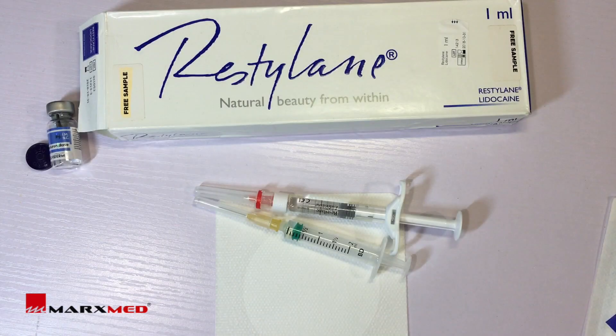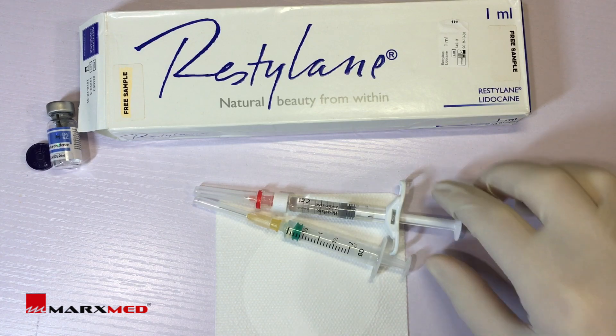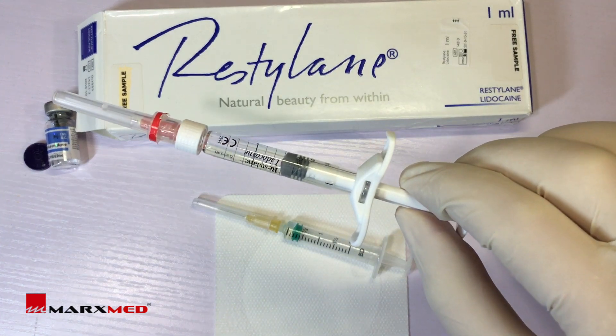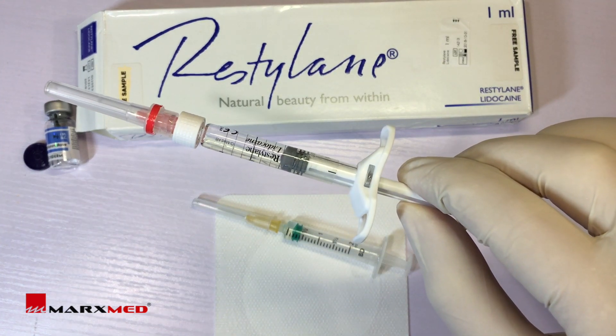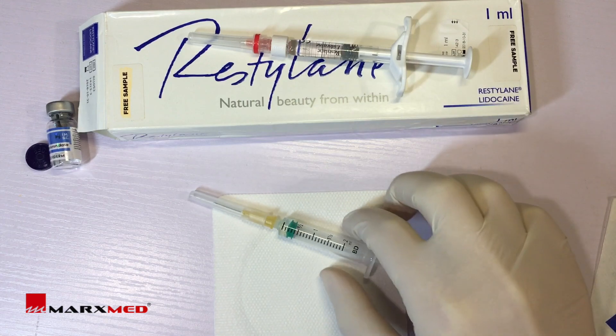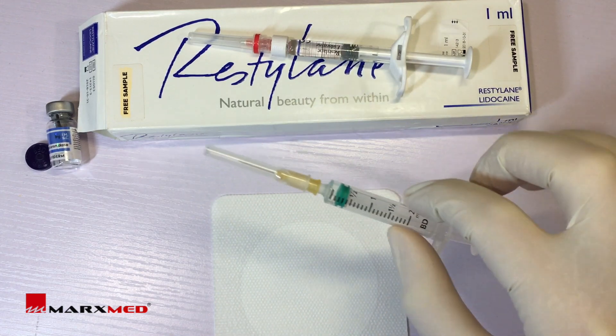This is a demonstration video about the effects of hyaluronidase on hyaluronic acid dermal fillers. Here we'll be using Restylane filler, and the other syringe is hyaluronidase, reconstituted in saline solution.